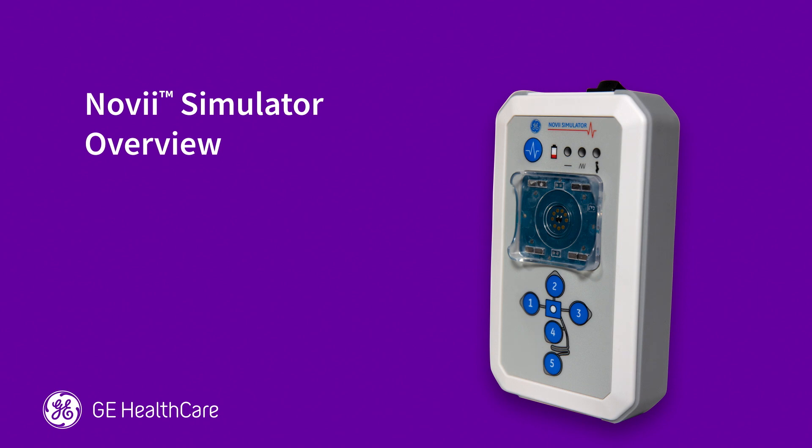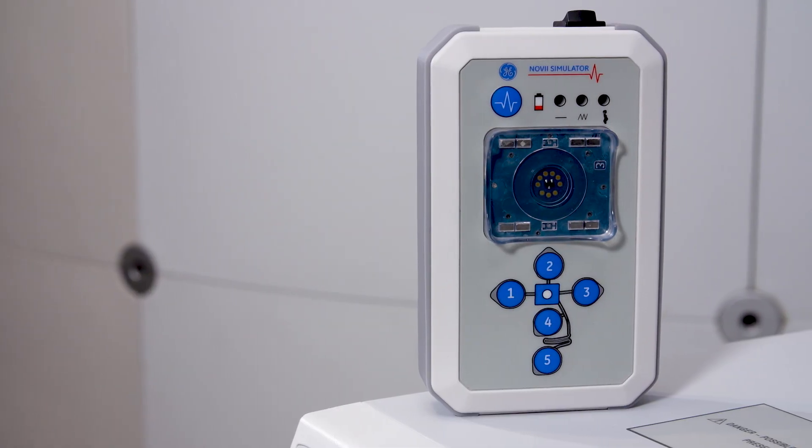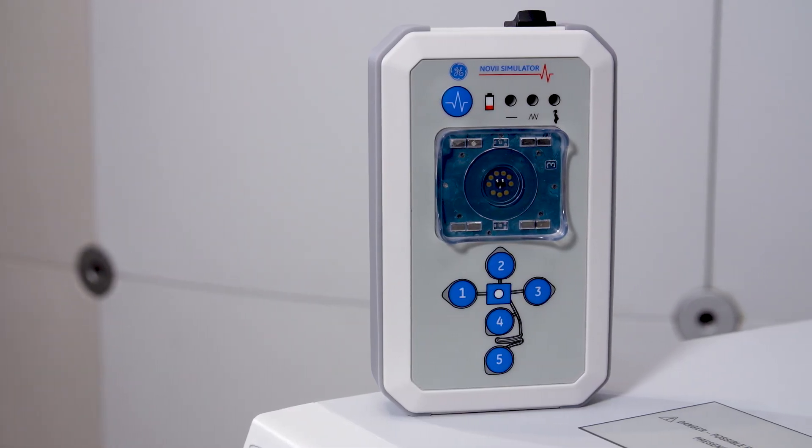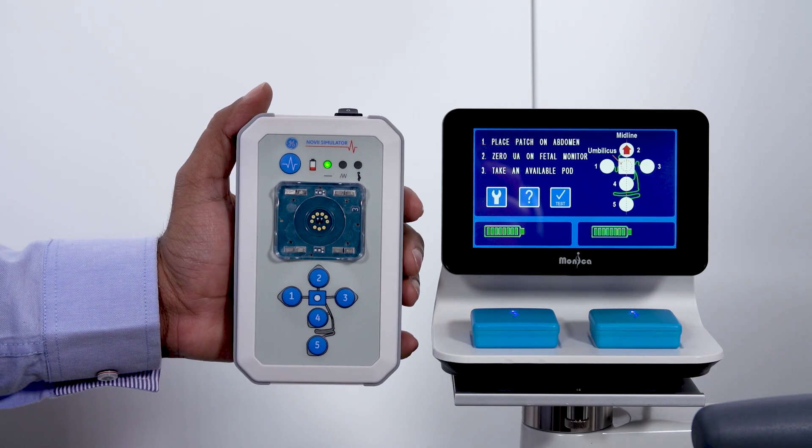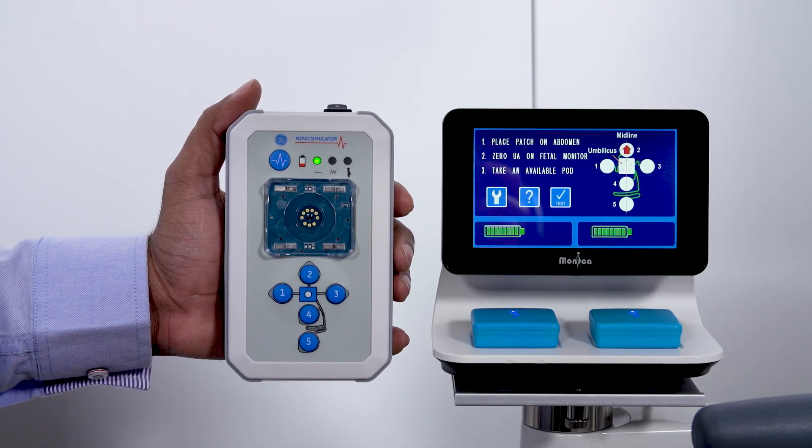Welcome to the Novi Simulator operation training. The Novi Simulator is a service tool used to simulate fetal heart rate, maternal heart rate, and uterine activity signals.